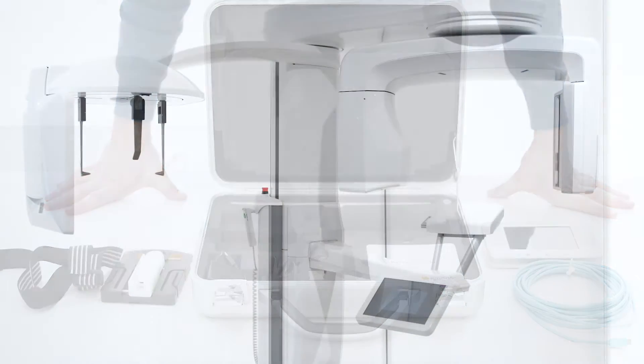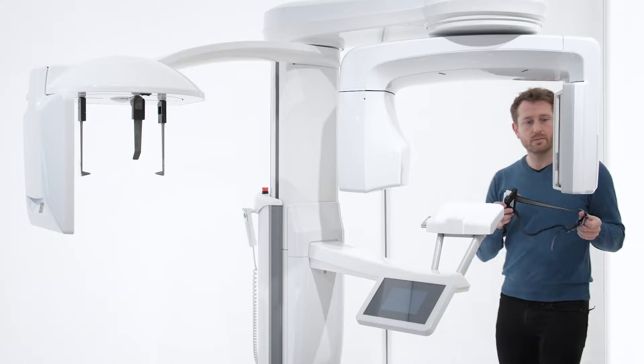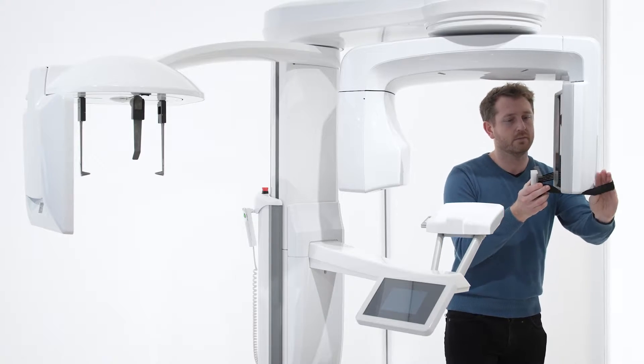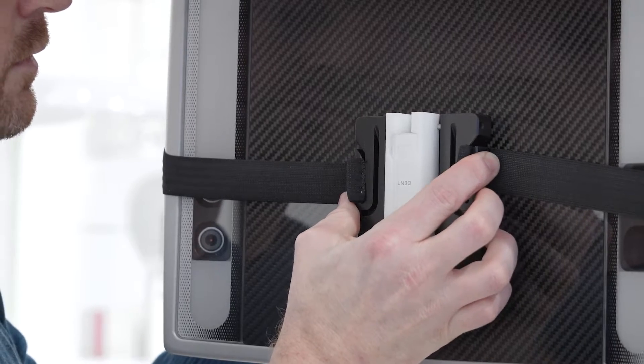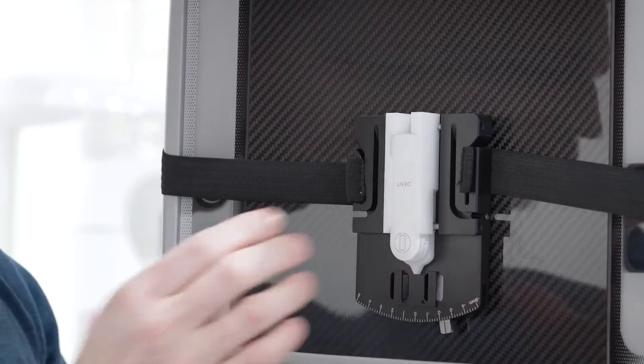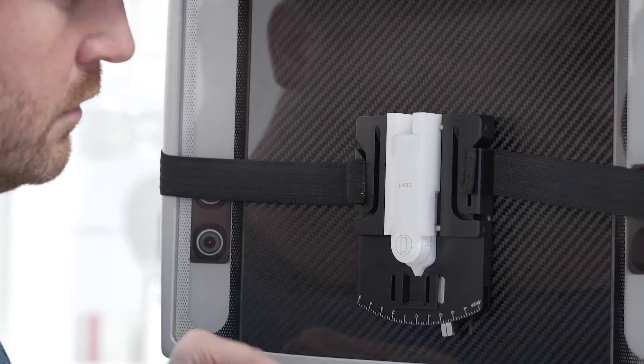Now, we are ready to measure. The challenge is to position the sensor in the exact center of the X-ray beam to get the maximum dose and correct HVL and KV readings. Place it centered on the image receptor and as vertical as you can.